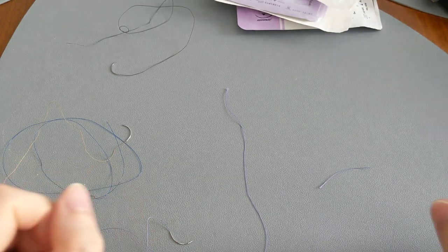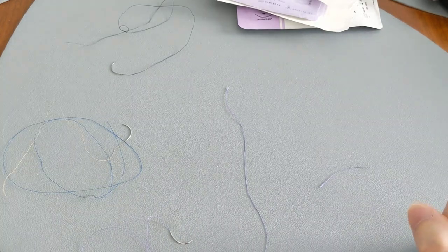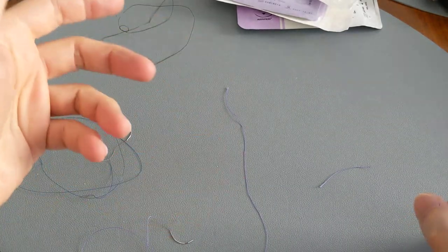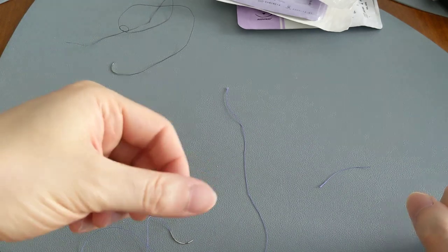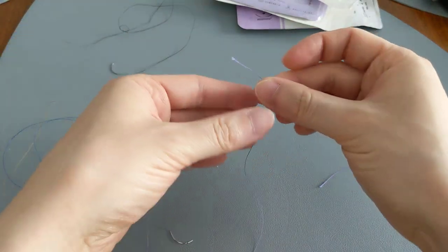I just want to show you the difference between a monofilament suture and a braided suture. The braided suture is basically a polyfilament, which are multiple monofilaments kind of wrapped around each other.